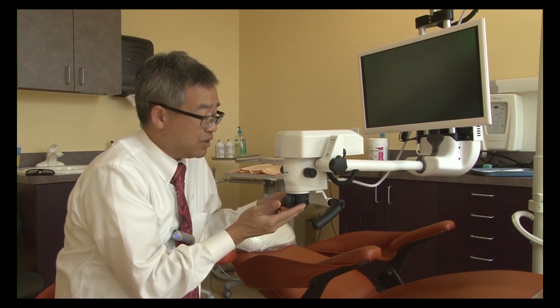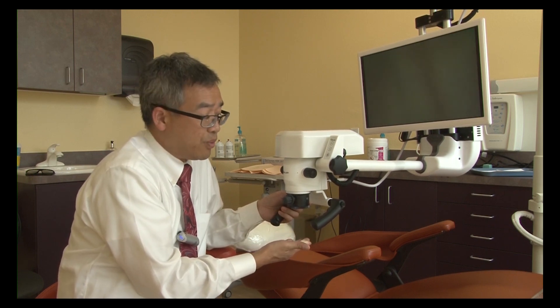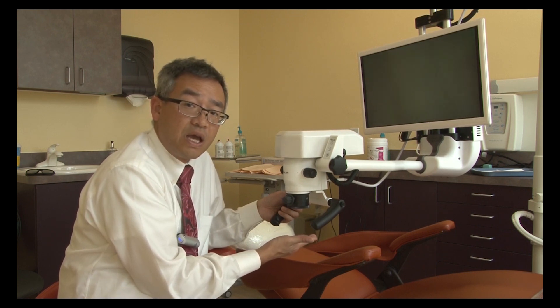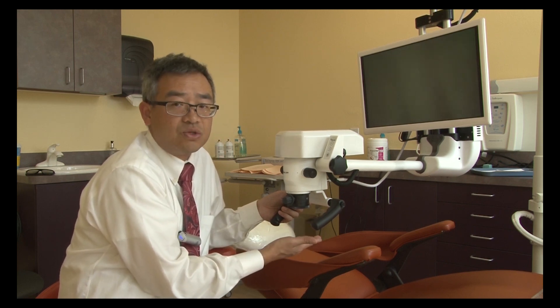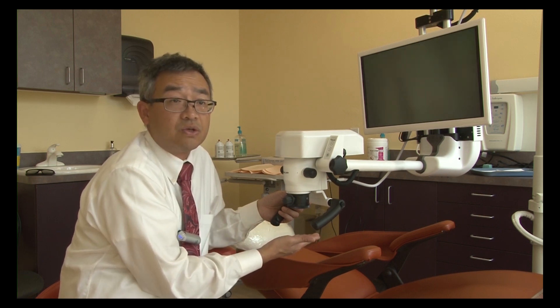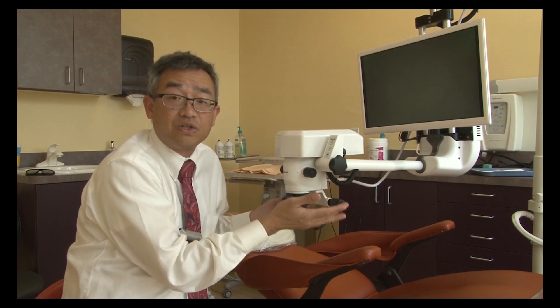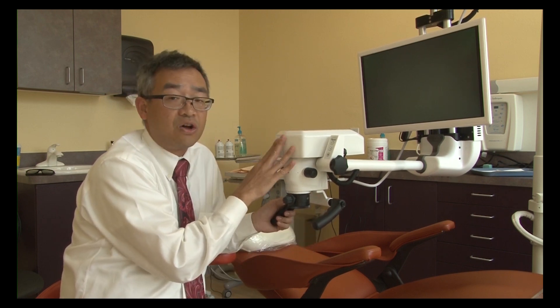Let's talk about the field of view, which is 100 millimeters — a really great field of view. But more importantly is the depth of view, which is way more than what the 2D microscope usually offers, giving you 40 millimeters of depth of field. That is where many of these characteristics put the 3D microscope ahead of the 2D. The LED lights should last a very long time — 50,000 hours — probably long enough for some of us to use it until we retire.